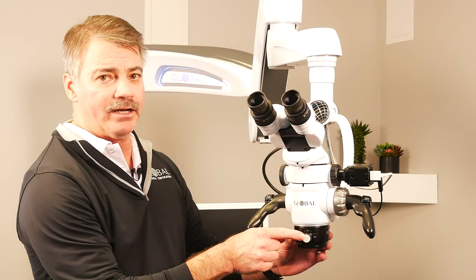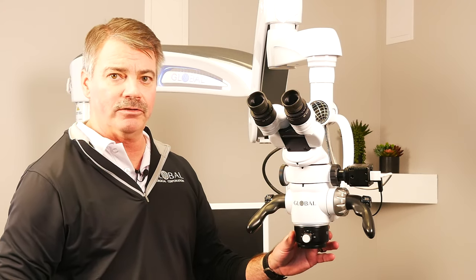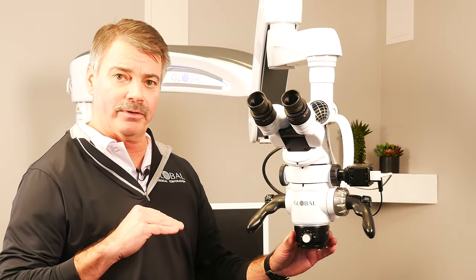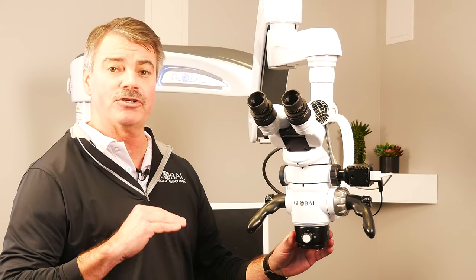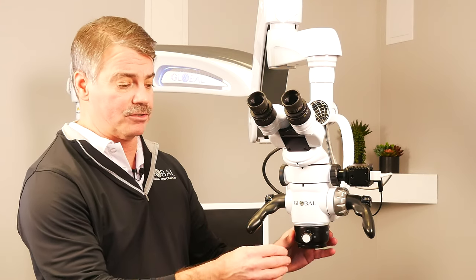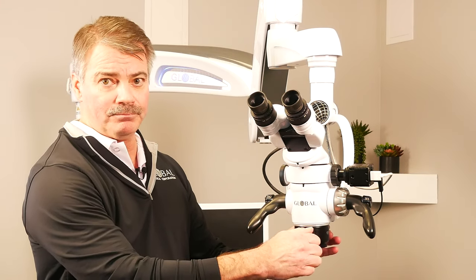With this little knob right here, you can go anywhere from 200 millimeters to 350 millimeters away from your target tooth and still get focus just by turning this knob.